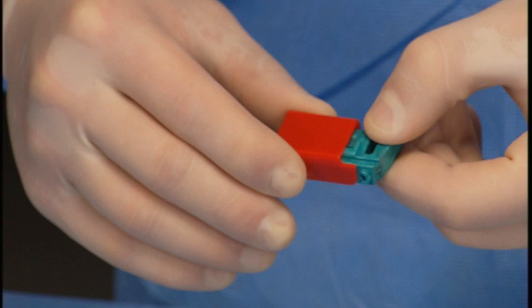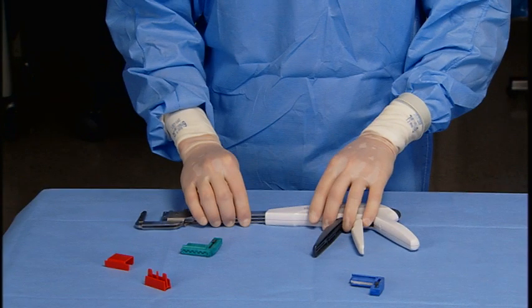Examine the new reload for the presence of a staple retaining cap. Remove the staple retaining cap by sliding it off the reload. If the retaining cap is not in place, discard the reload.